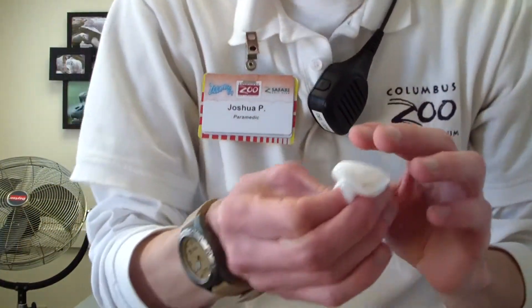So just clean off the wound and put a band-aid on it. If it's low, fix it. If it's high, fix it.